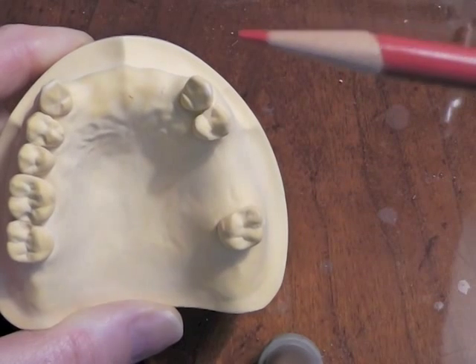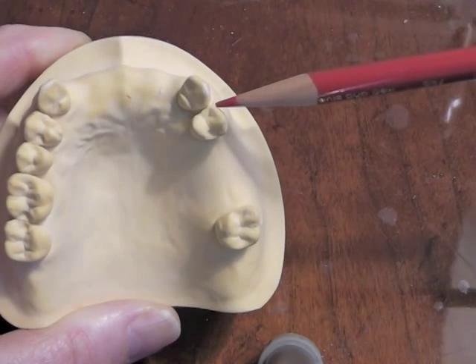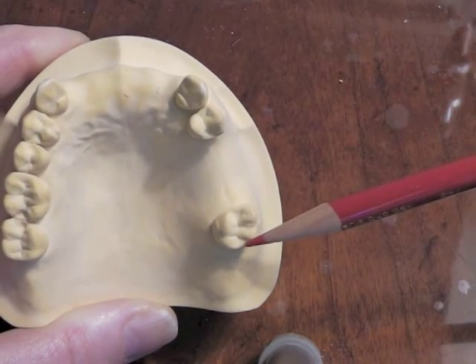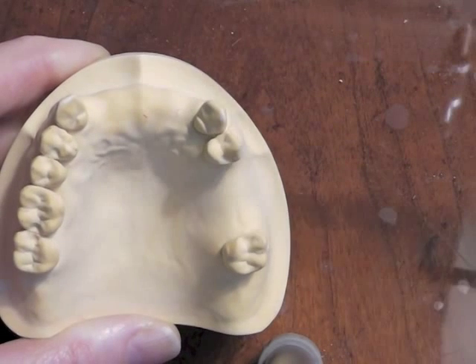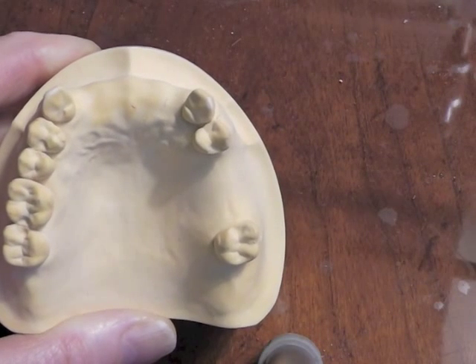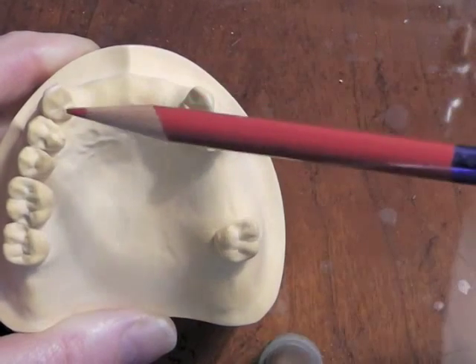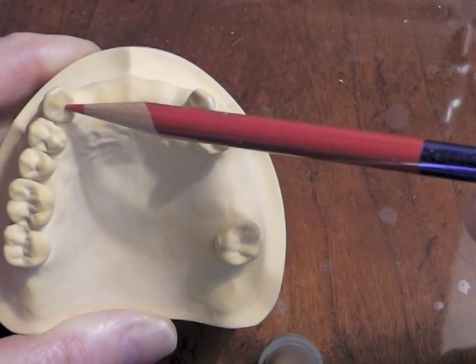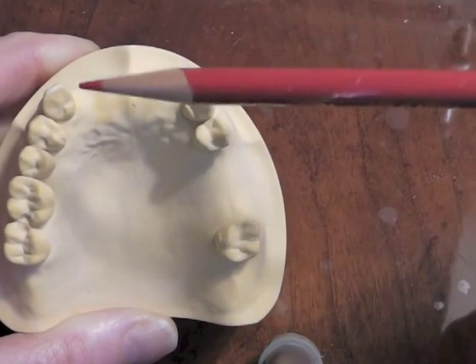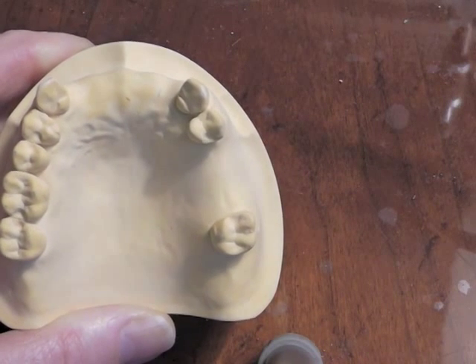We really need just two undercuts per side. On the Kennedy Class III, we tend to clasp next to the edentulous area, so we're going to be thinking here and here. In addition, we have the rule that we will need a rest next to or near each edentulous area, same as the Kennedy Class IV. So because we have this edentulous area in the front, we're going to plan on placing a rest on the two canines, regardless of whether we're going to clasp them.